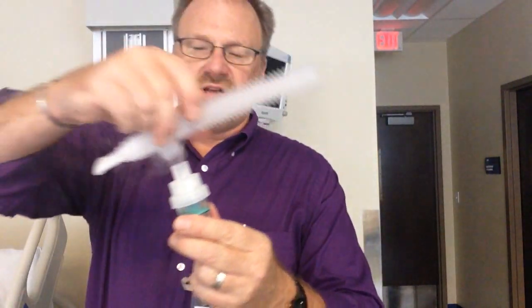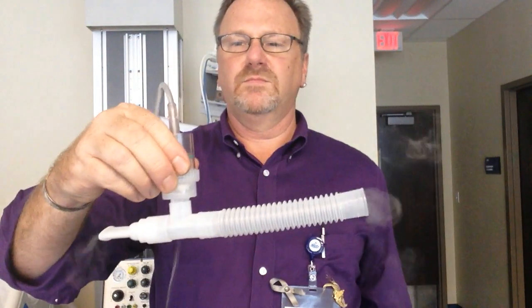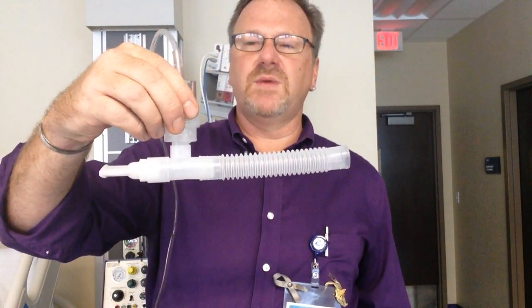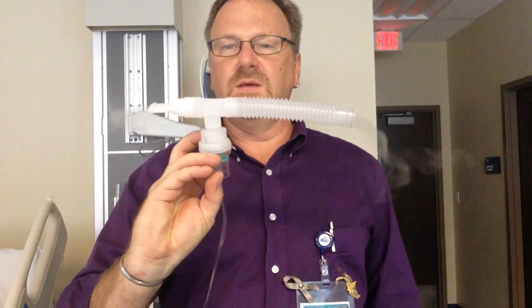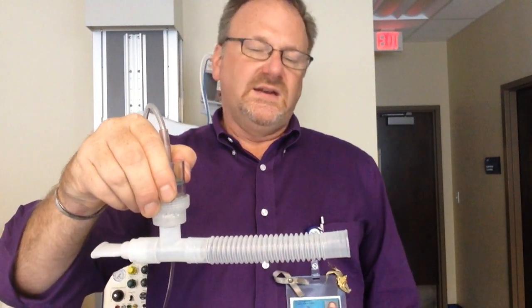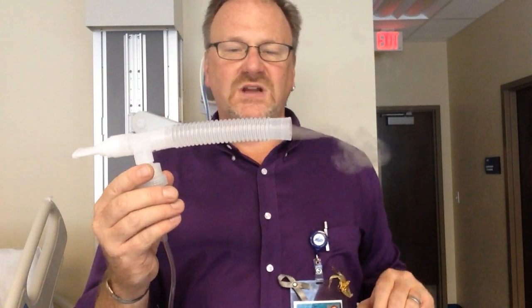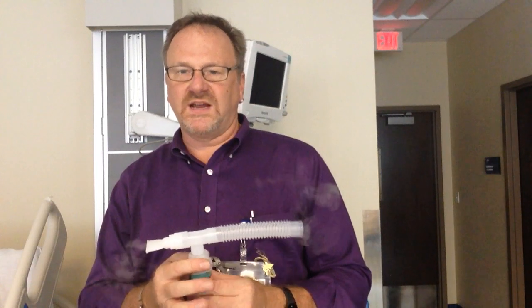is if the patient wants to take a break, typically their phone will ring, they want to take a phone call. They do not lose any medication. They can turn it upside down and they do not lose it. Pick it back up, keep going. That is the advantage. Disadvantage, wasted medication. It's nebulizing on inhalation and exhalation. Another disadvantage, you are getting exposed to secondhand albuterol.